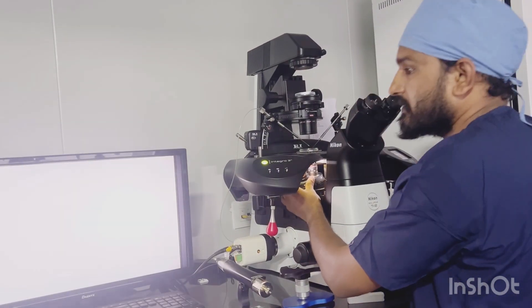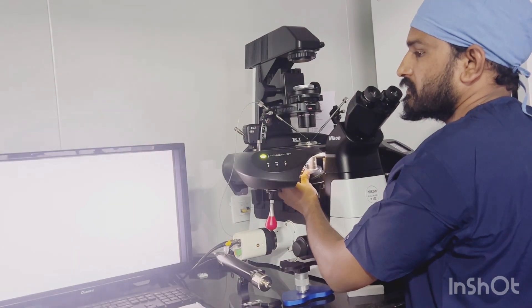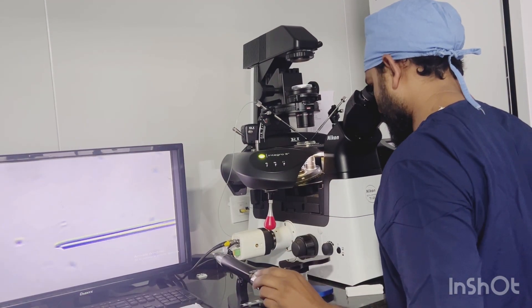Then this is 10x and this is 20x, where we have to do our compression.